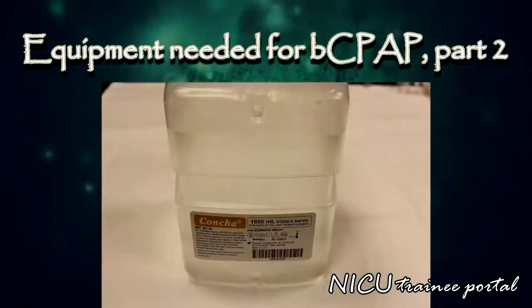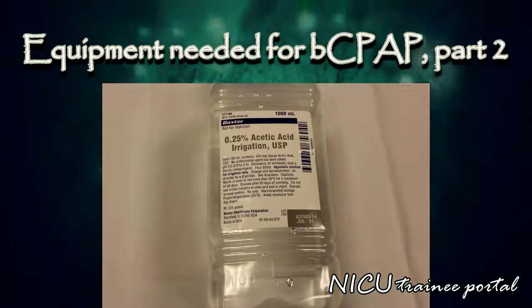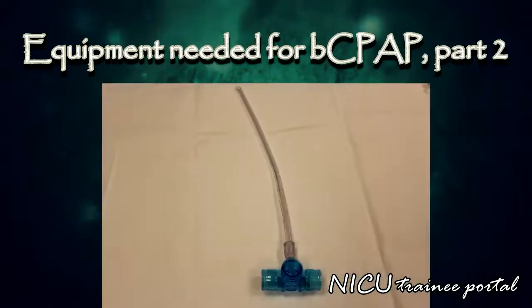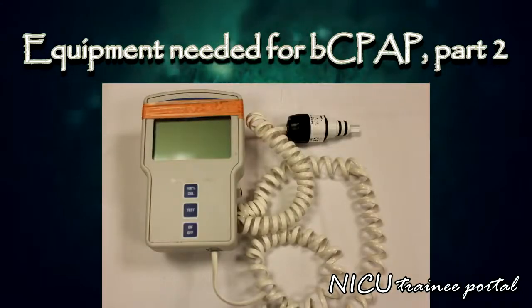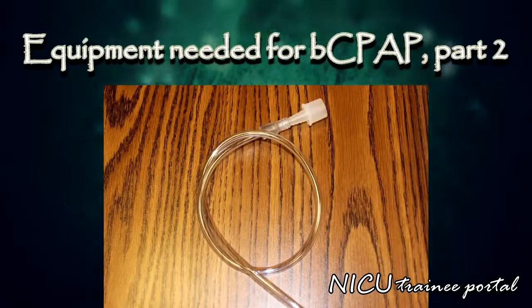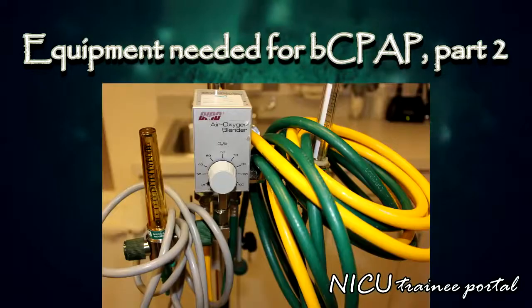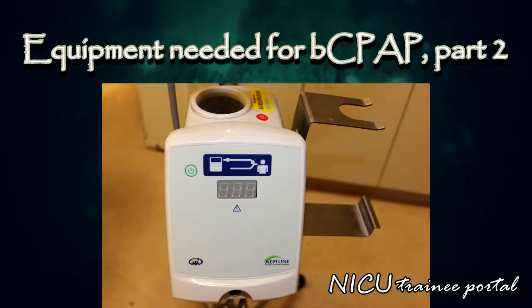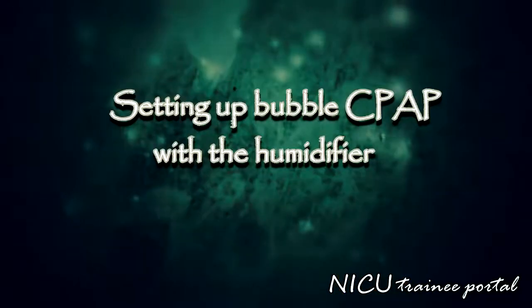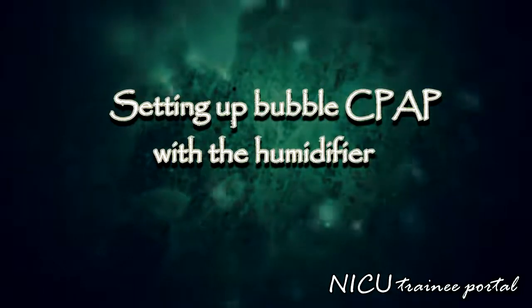Water column chamber, sterile water bottle, 0.25% acetic acid, analyzer connector, analyzer, flow meter attachment tubing, breathing circuit with corrugated tubing with inspiratory limb and expiratory limb, oxygen blender, heated humidifier chamber. Now we will demonstrate setting up the bubble CPAP circuit with the humidifier.